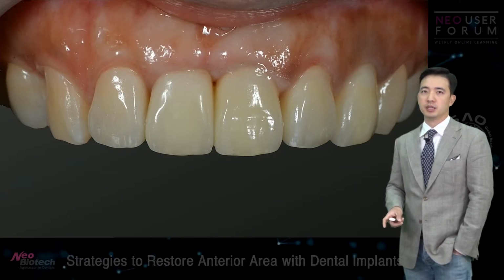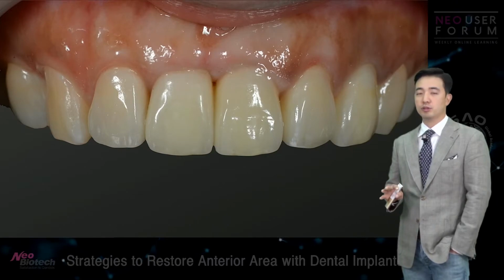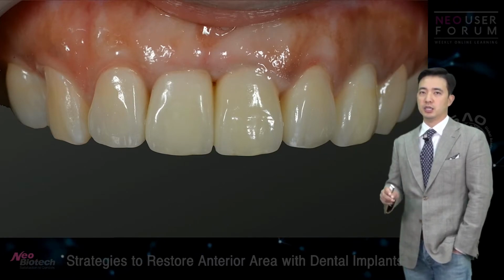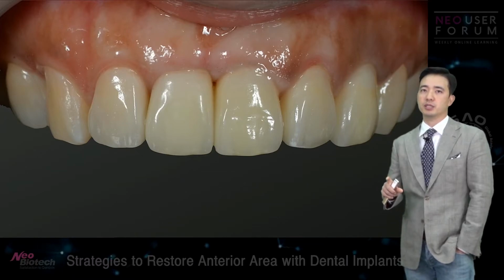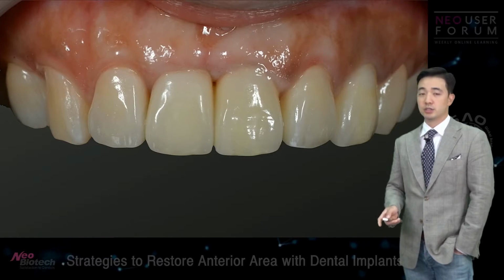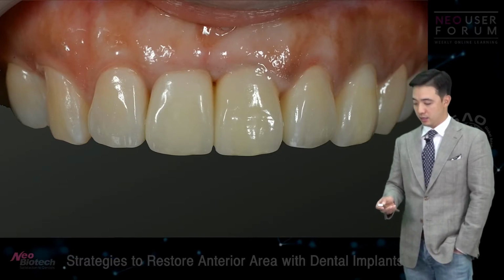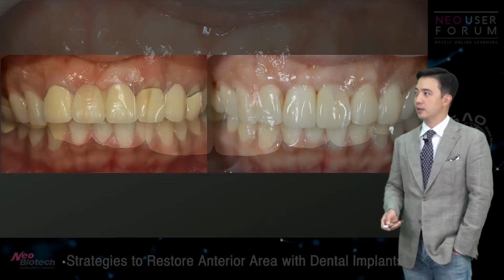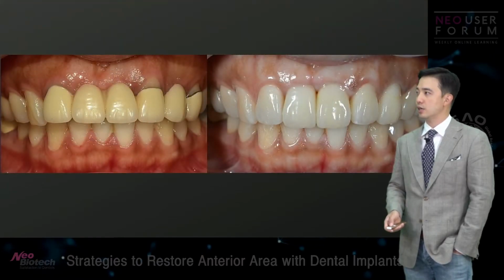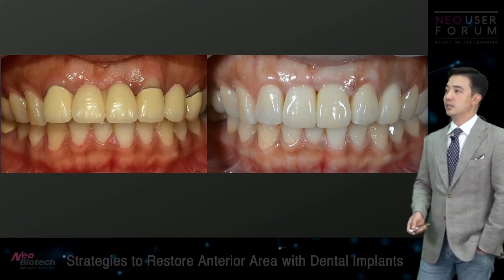So what I think is, the cold cure acrylic provisional restoration, the surface of it is very porous and the soft tissue doesn't like it. But with the zirconia surface, we kind of gained the soft tissue back. So this is how we started, and this is how we ended. Well, the patient was at least happy.